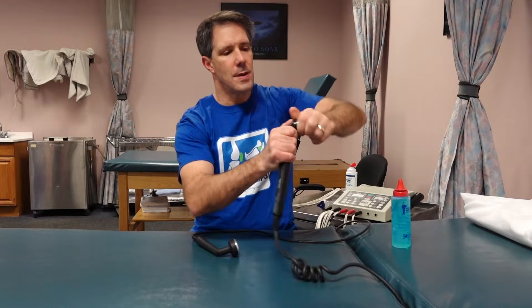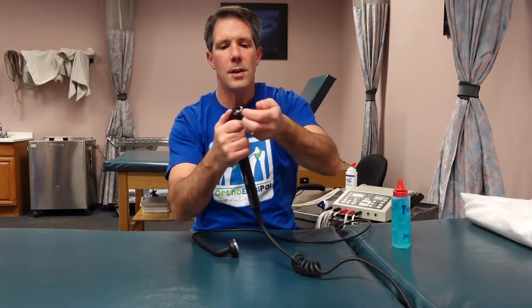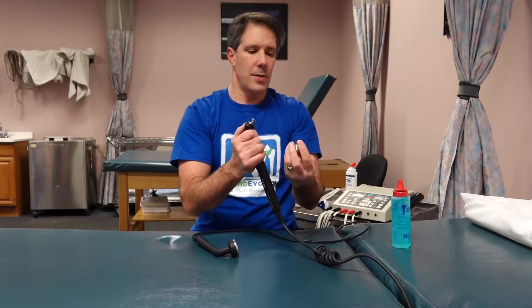So how does ultrasound work? Inside this sound head is a manmade crystal — lead zirconate titanate. It's basically three elements put together so that when electricity hits it, it expands and contracts really quickly. When it does that, that expansion and contraction causes a vibrational sound wave.